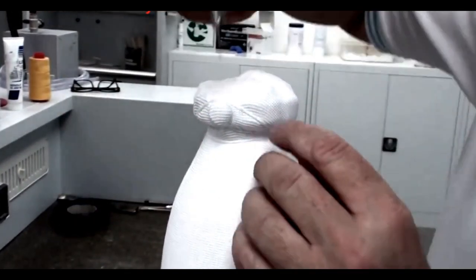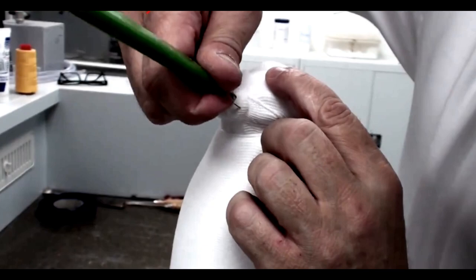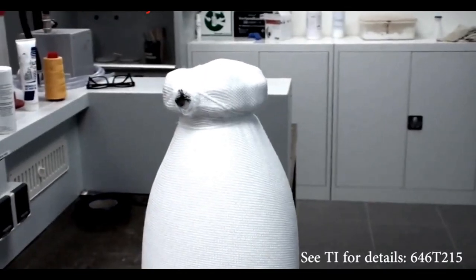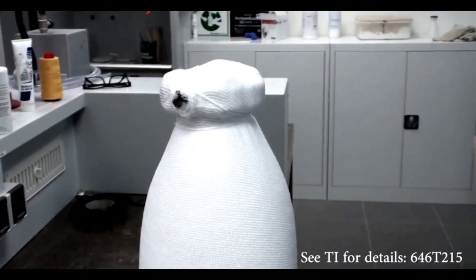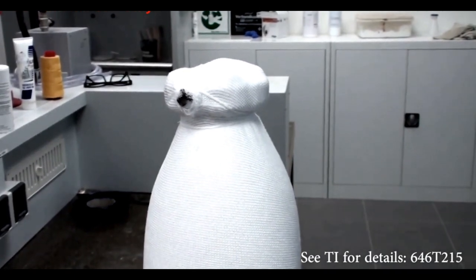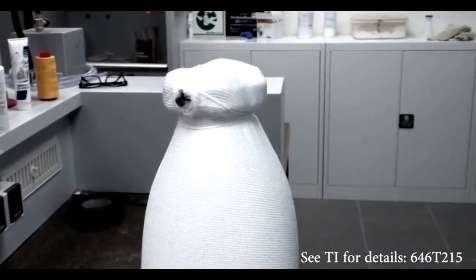Now expose the end of the lamination dummy. Now you're ready to use your carbon layup and complete lamination of your DVS socket.